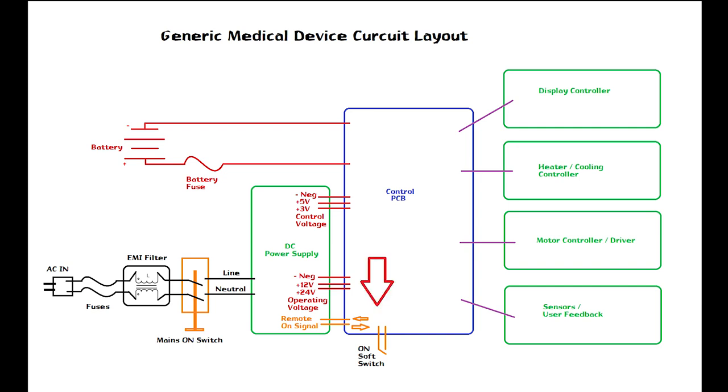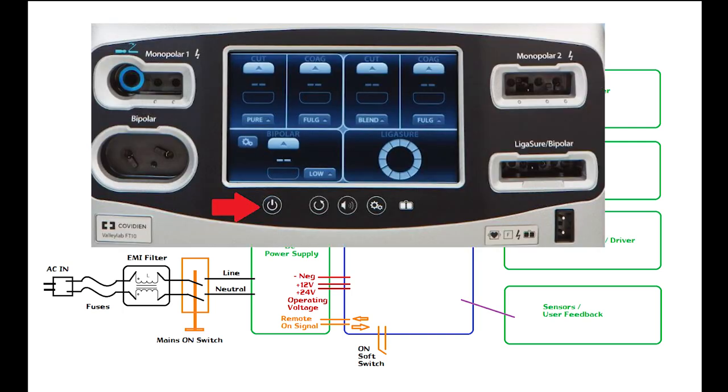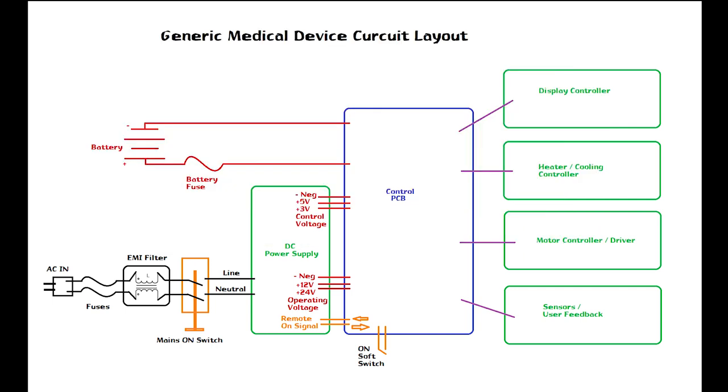And at the very bottom of the control PCB I want you guys to take notice that I have an on switch, which is a soft switch. That is the lit up button on the front of your device. You push the button and it magically turns on. That is a soft power switch.